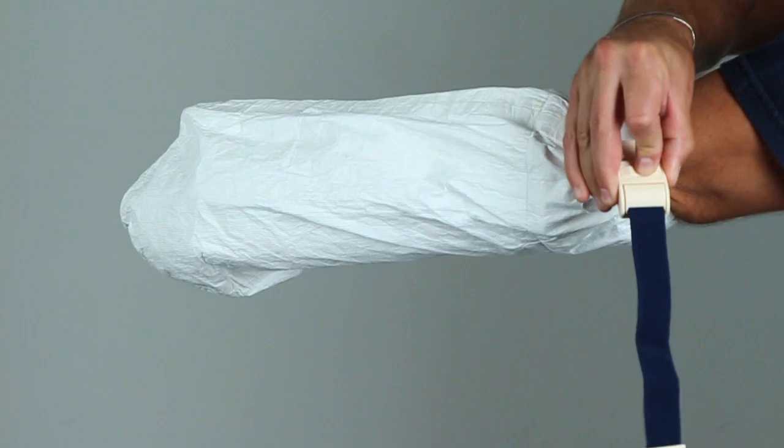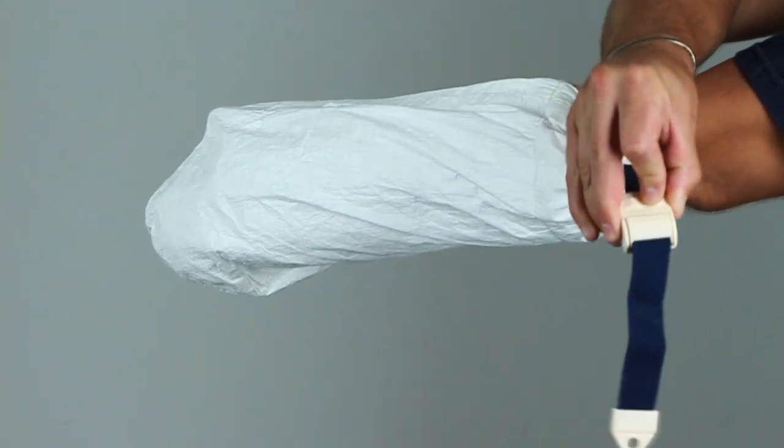When you are ready to remove your cast cover, simply push the release button on the tan clasp.